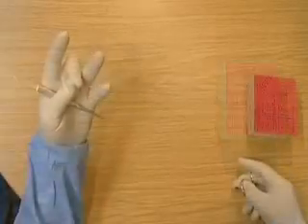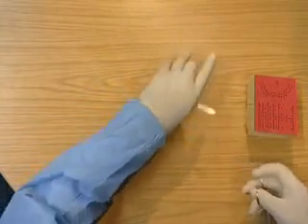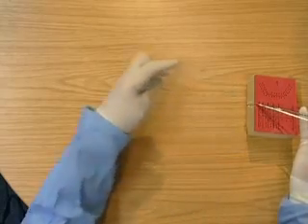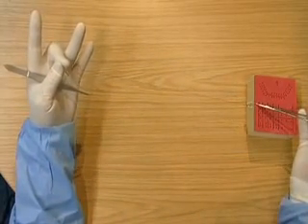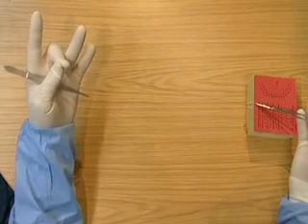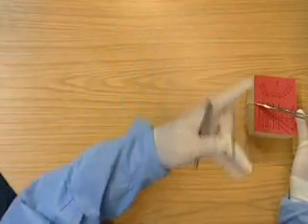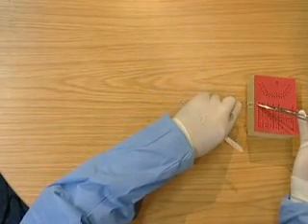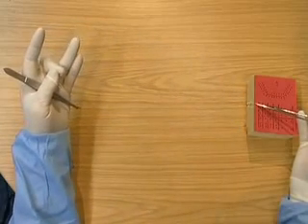Practice the winding on exercise: over, over, over, and then tighten the knot. It's helpful to have the third and fourth fingers sticking out straight and the first finger sticking out straight, so that when you go over, it's easy to wind on the second and third fingers. If the fingers are too close together, you just have to wind on more times than if they're apart.